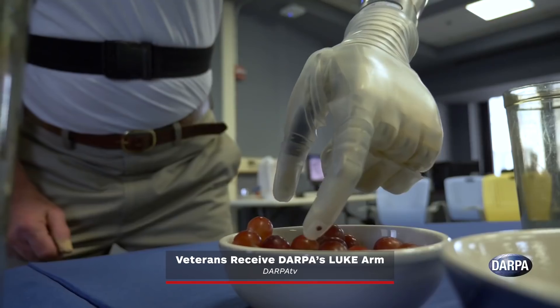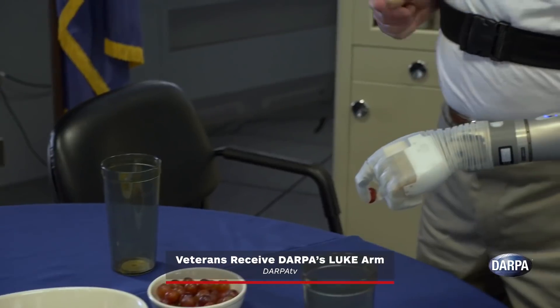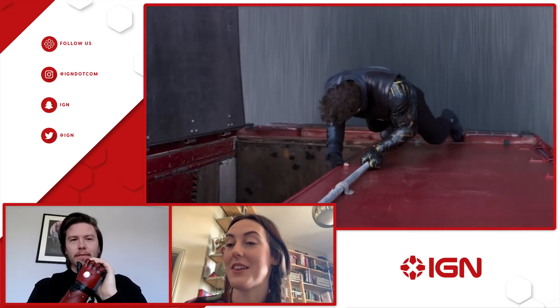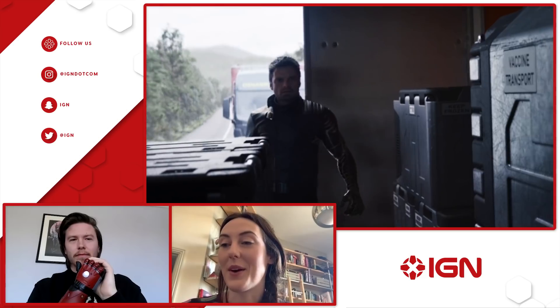We need a bionic arm made of vibranium in real life. The most advanced bionic arm available is made of metals and that makes it super heavy, so vibranium is meant to be super lightweight. Our friend would be kind of lopsided and tired most of the time from carrying the weight of his bionic arm. If I was to put this on the ground while holding on like he was, it would just start melting and grinding and probably eventually just come off.